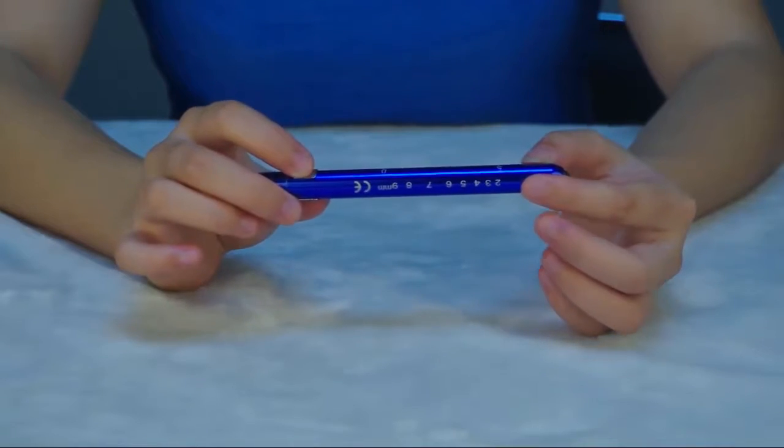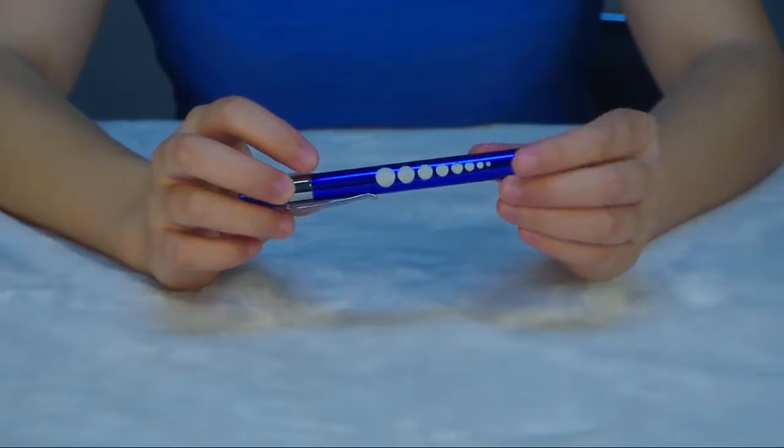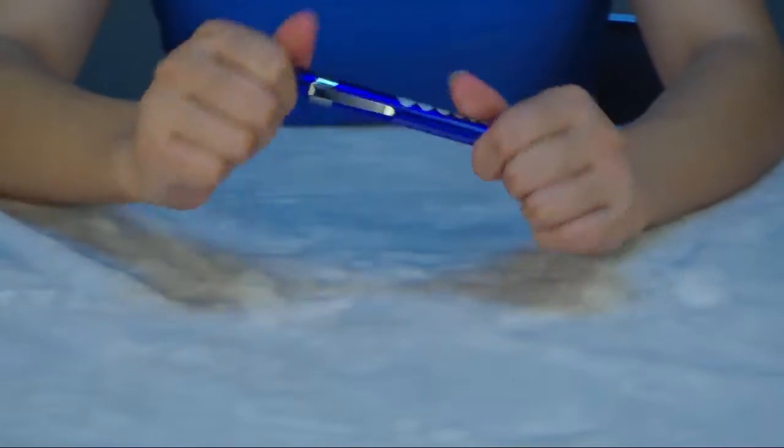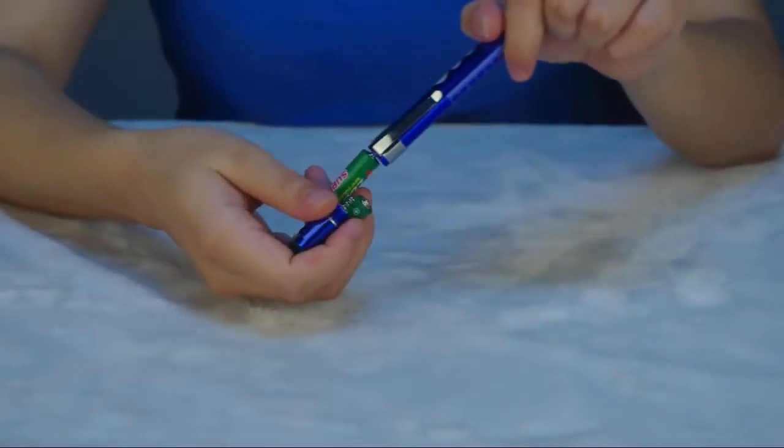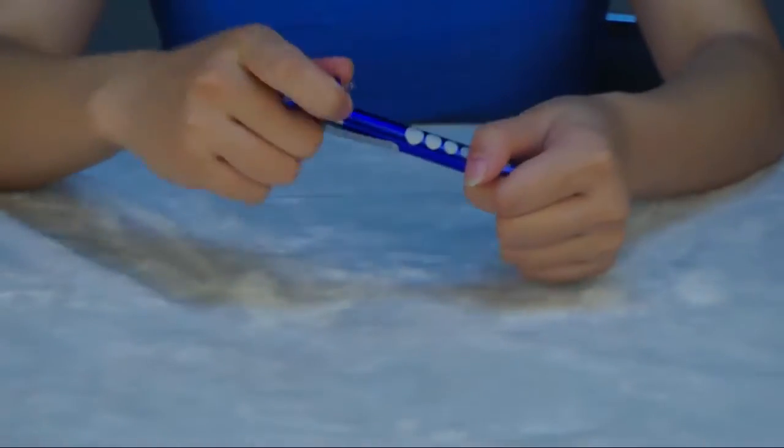The pen and markings are not easy to be damaged. Two 3A batteries are included in the package.